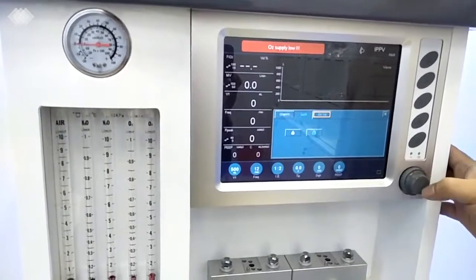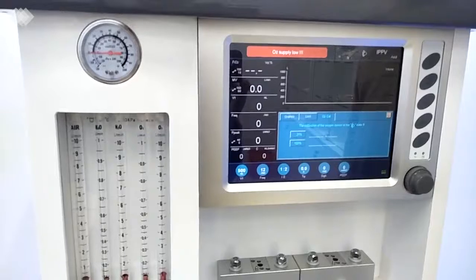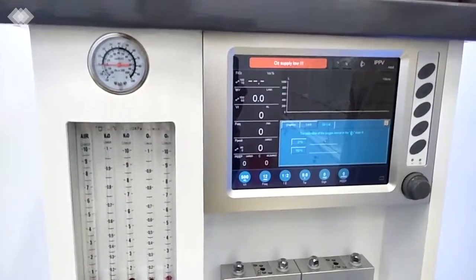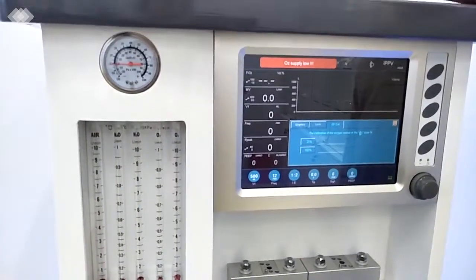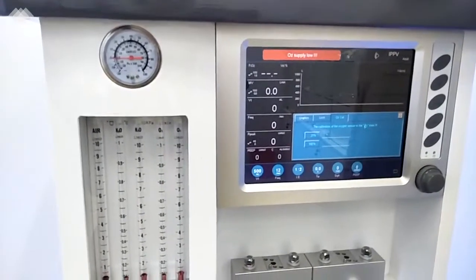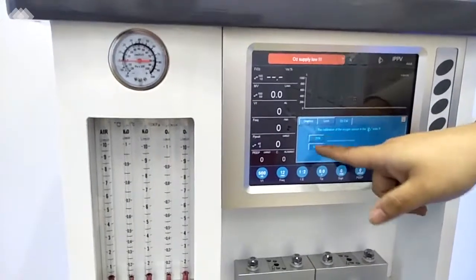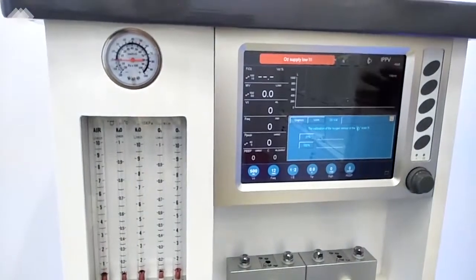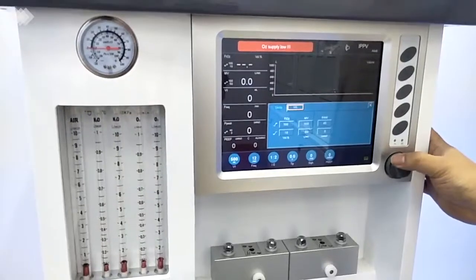And the third one here is for the oxygen calibration. For all our machines, we have the oxygen calibration. Before the machine is shipped, we will do the calibration in China, in our factory. But we know in different countries, the oxygen concentration in the atmosphere is actually different. So that's why, as I mentioned first, before you use the machine, you only need to do it one time at 21% and 100%. And also in the installation video, we have the steps to teach you how to do it. Very easy. The fourth button here is also for the alarm.